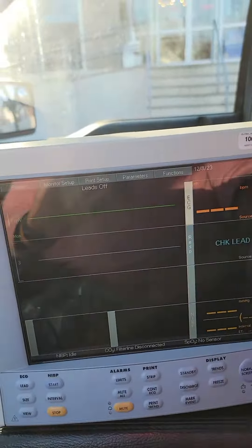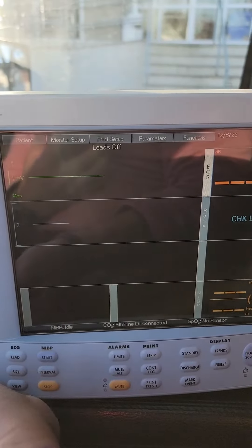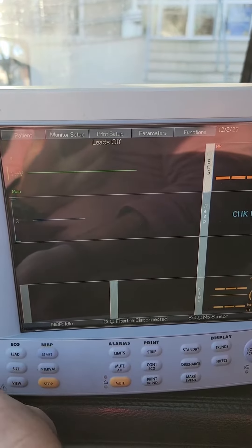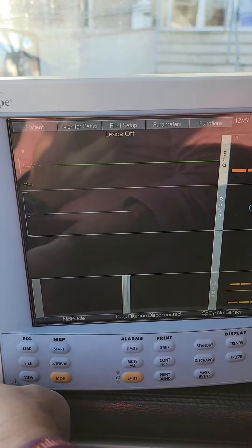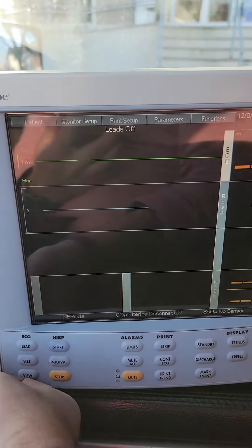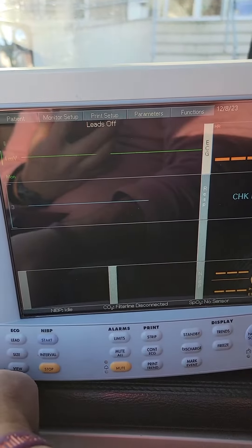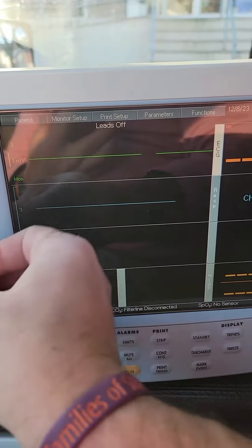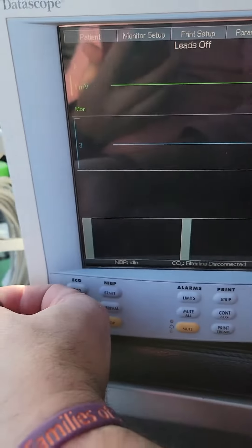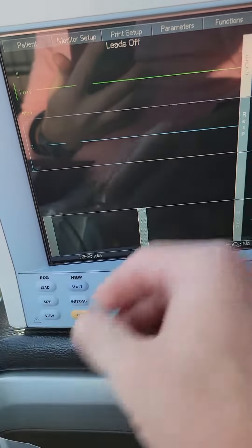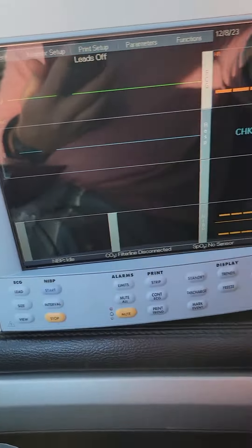It's not hard to do. Find the setup menu for ECG, go down. I already did on this one, but see, auto-detect, which doesn't make sense unless you've got a bunch of 3-lead and 5-lead and you're swapping around your facility.